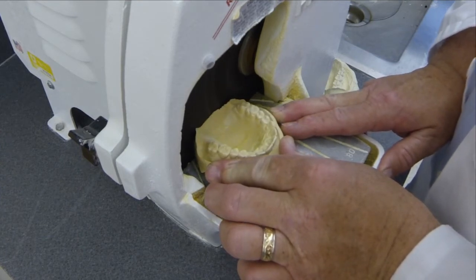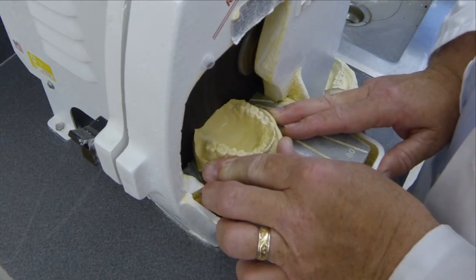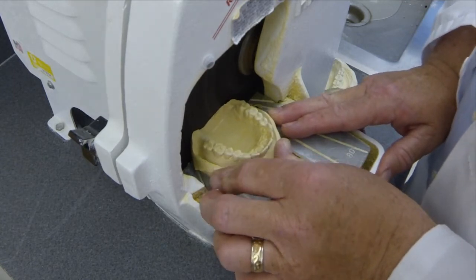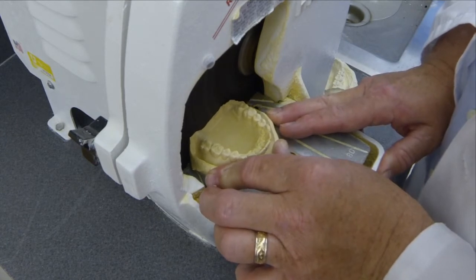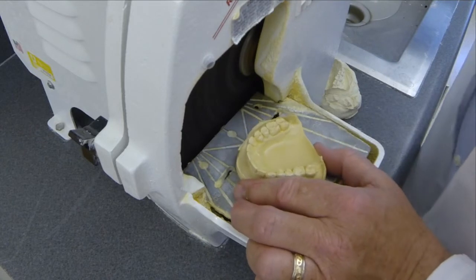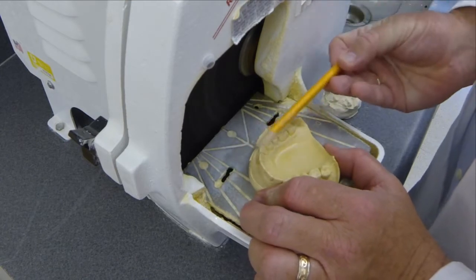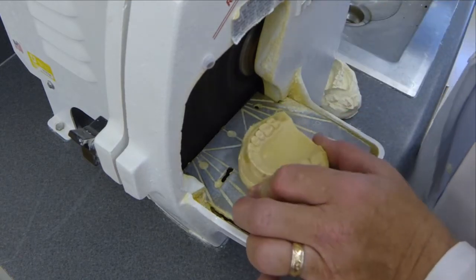And you can see that the stone is just being carefully trimmed away. We may go just a little bit further on the patient's right side than on the left until we get it somewhat symmetrical. The next plane, as I mentioned, is from the distal buccal cusp of the second molar to the cuspid, forming a straight line that I will make parallel to the blade of the trimmer.